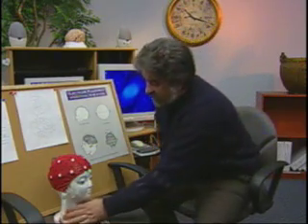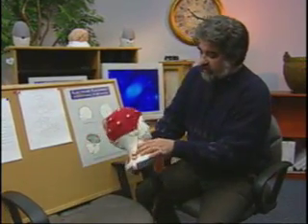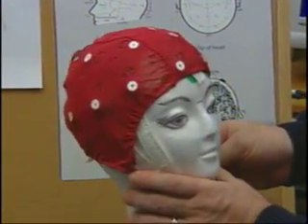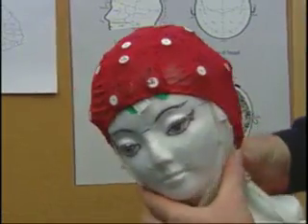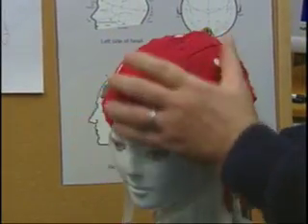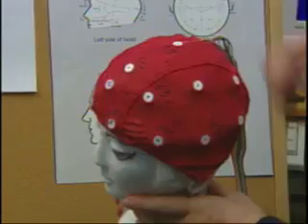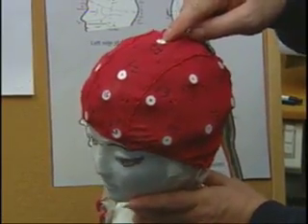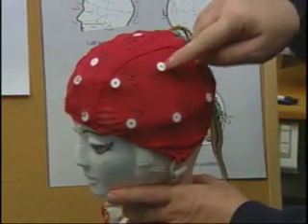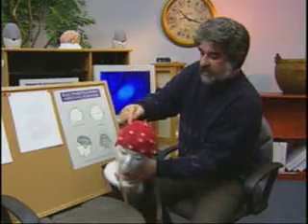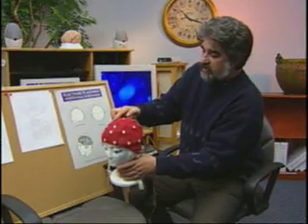To further illustrate, we can use this wig maker's dummy, which has been fitted with a commercial electrode cap. This cap is designed to automatically find the correct locations, and we've marked some of them for you. For example, if this cap is simply pulled on snug, the electrodes find their position, and C3 is found directly on top of the head. I'm sorry, CZ is found directly on top of the head. C3 is on the left side, and C4 is on the right side. Again, these are the most common positions you'll be using.